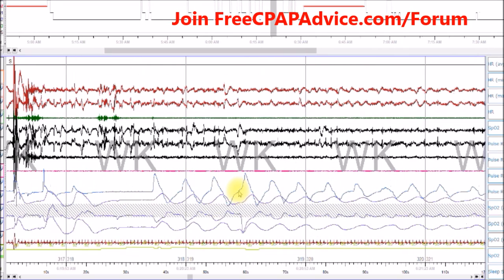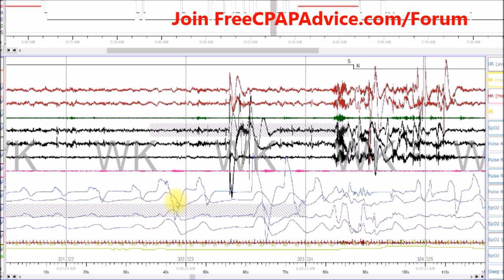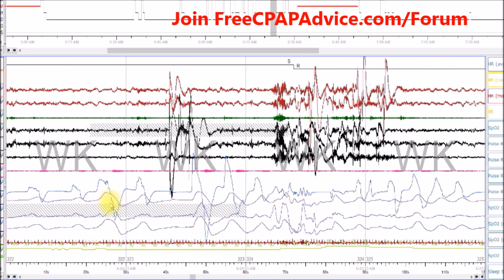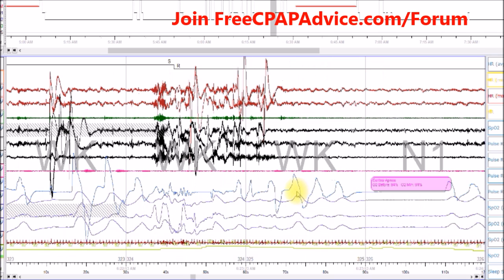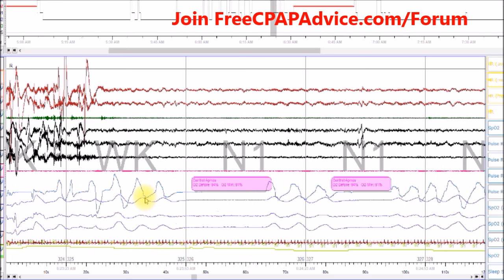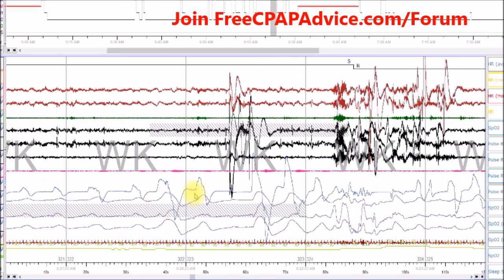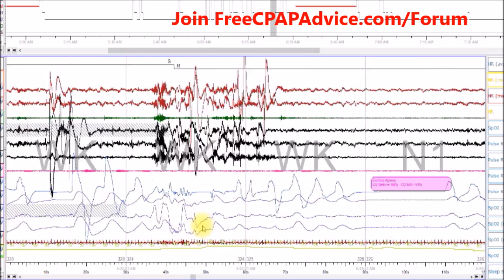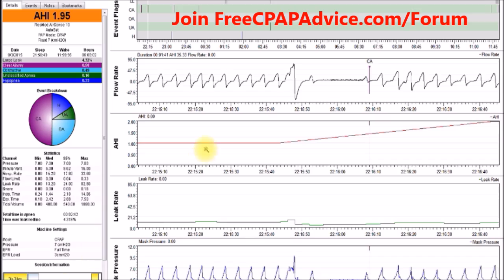SleepyHead is an awesome tool but it can be very confusing without EEG, and also if you're not 100% sure what the waveform should look like. Anytime you see jagged, weird looking stuff, you know it's awake and you can throw out a lot of the surrounding events. Here look at the breathing - how it's more stabilized and normal versus all this chaos. This looks like a central apnea, but it's not because there's irregular activity around it. You can pull out a lot of these and it would bring your AHI score for clear airways much lower - this seems to be a big stressor with SleepyHead.